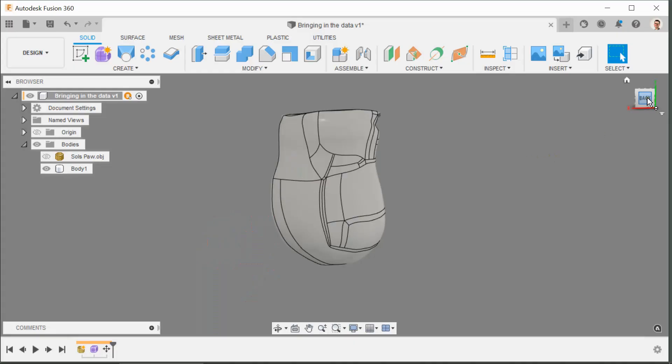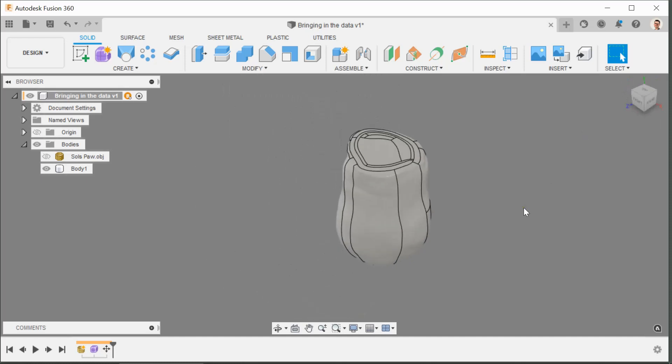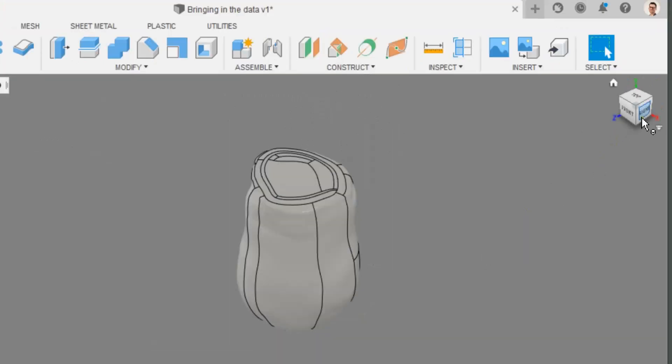Points to touch on today are the NaviCube which I'm going to be using, so you can always come back to the view that you start with. If you just click this button here it takes you back to the home view.